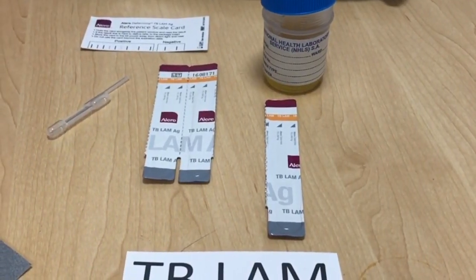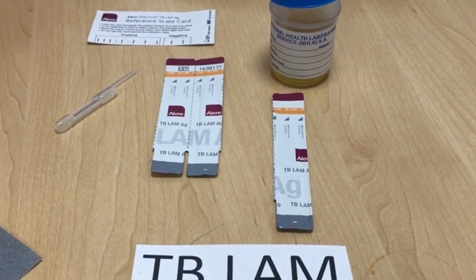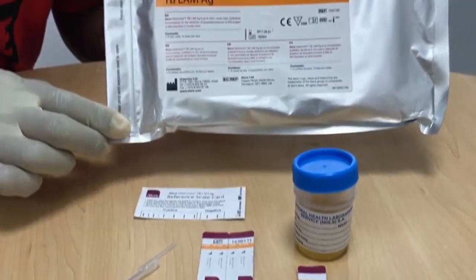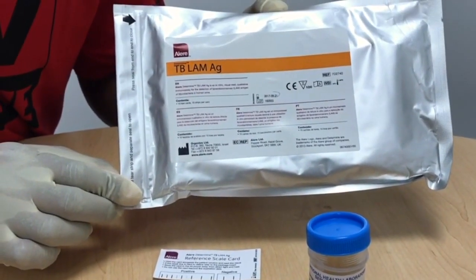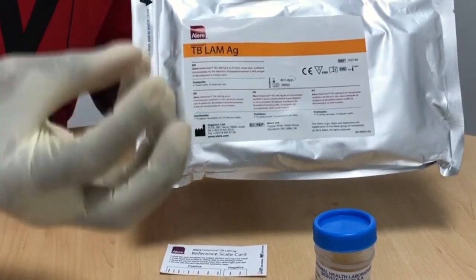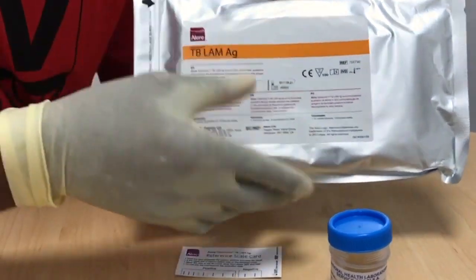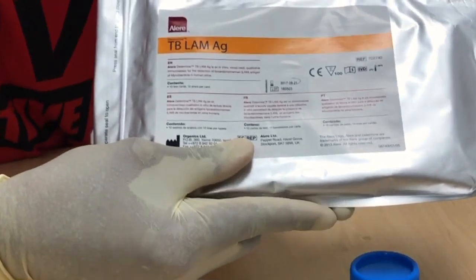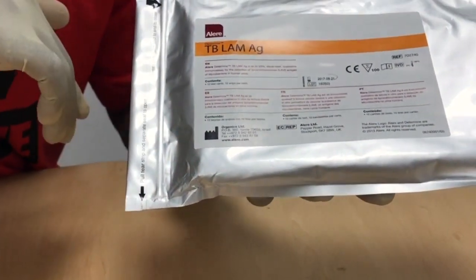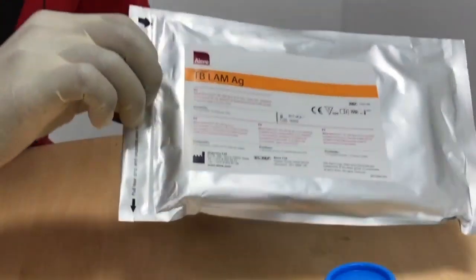Our patient suspected of having advanced HIV has already been screened, and the CD4 is less than 200. We progress to the next test: the rapid TB LAM antigen test. This test detects the cell wall of the mycobacterium from the urine of the patient. It is very sensitive among patients with advanced HIV with CD4s less than 200, and is recommended by WHO for patients with less than 100.